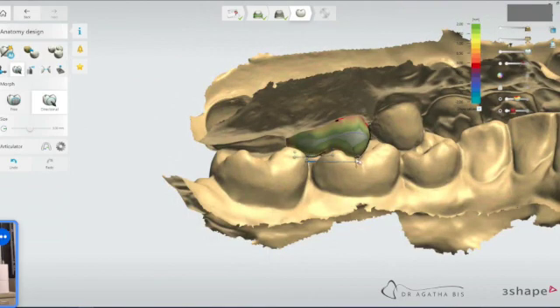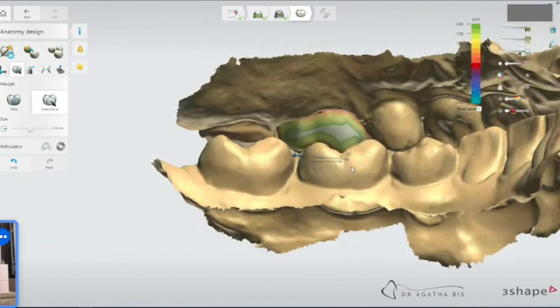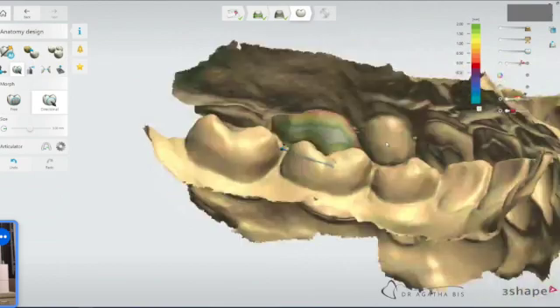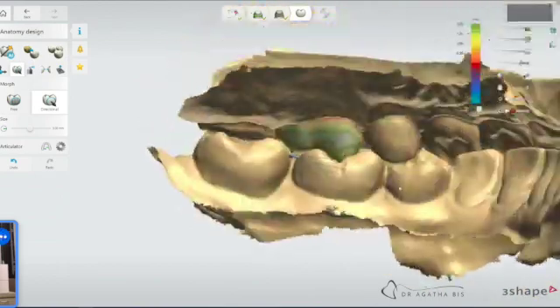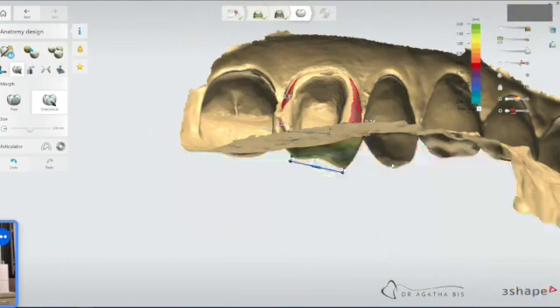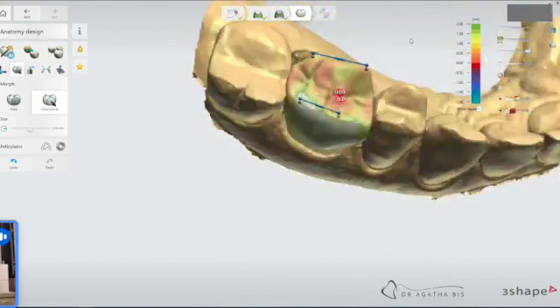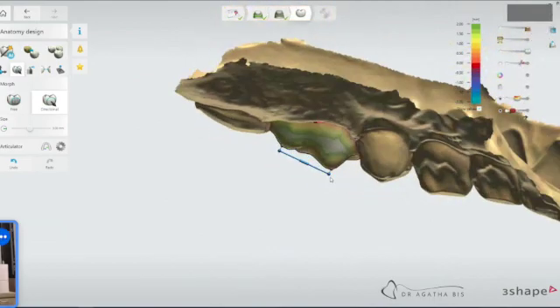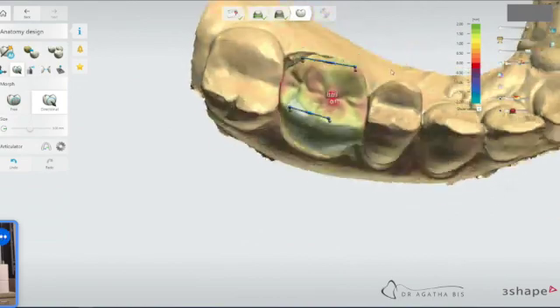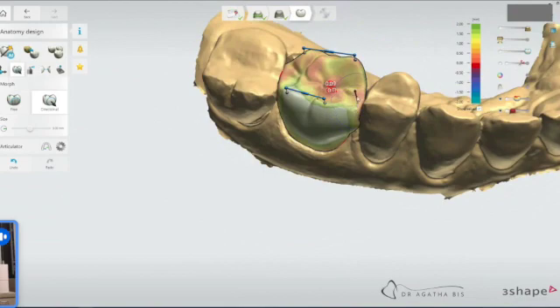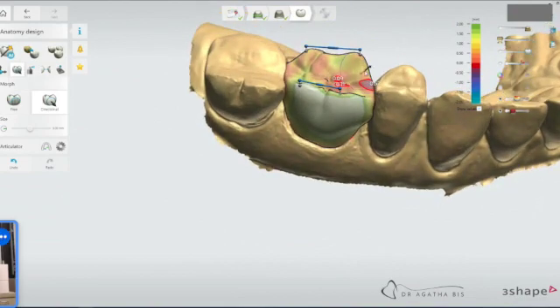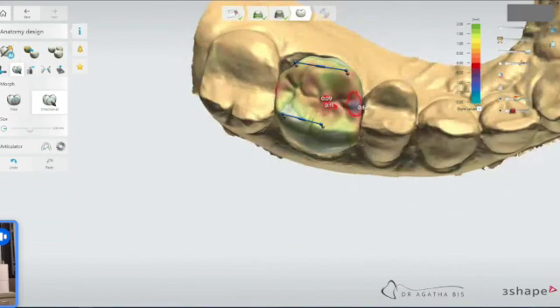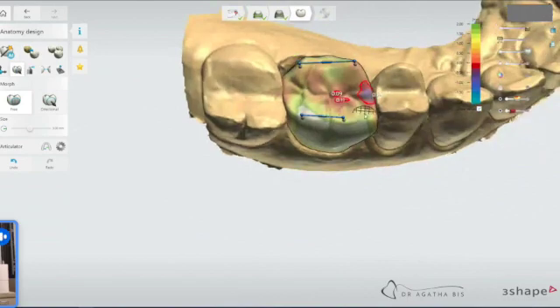So let's see when will it look like this? Still not in contact. Interesting. So now it's looking a little silly and long. So clearly we don't want that. And I might actually even pull this area through. You can go anywhere on the tooth and move things. I'll show you the free one as well. If you just go free, you can take this whole section and just raise it like that.